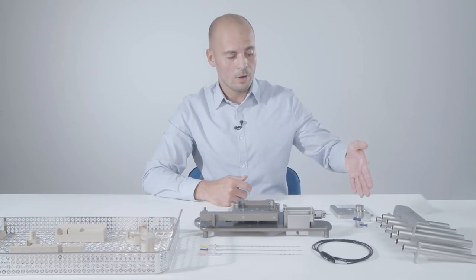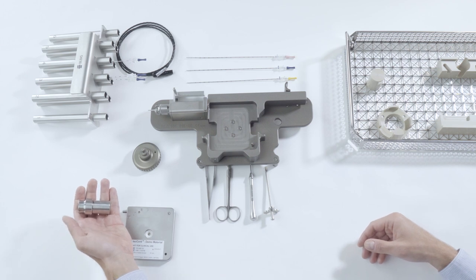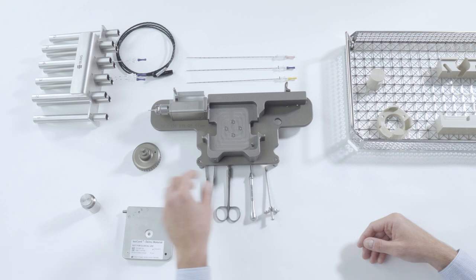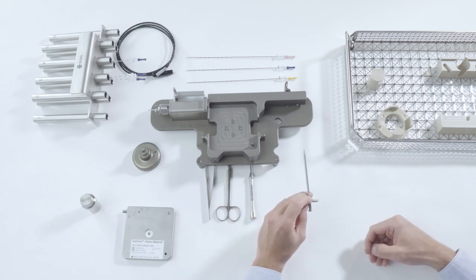The isocord waste container can be used for storage of any radioactive disposal while the transfer tube is used to reload implanted needles.